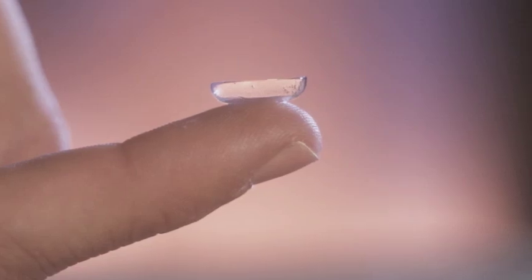We can create a contact lens that wears or feels exactly like a regular contact. And because the molecules that we use to detect glucose are at such a low concentration, you don't even feel it. And we are also working on a software so that you can read the sugar concentration with the camera of your cell phone.